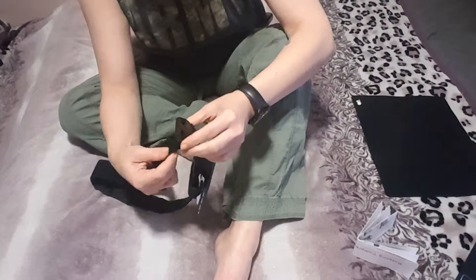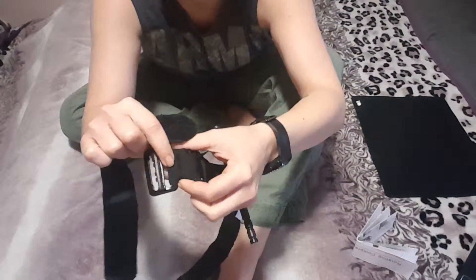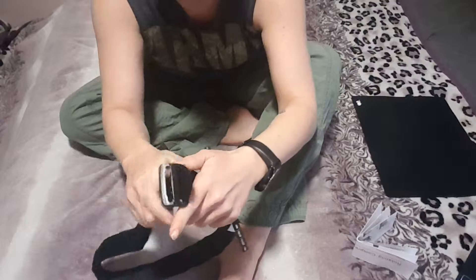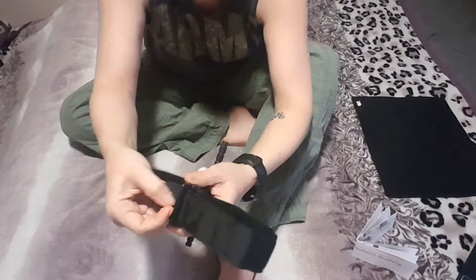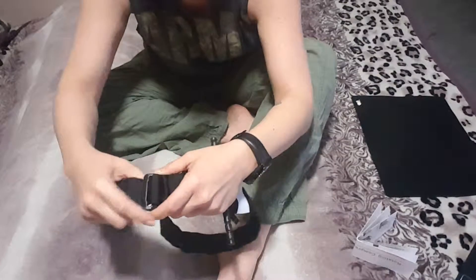So I'm going through the first one — there's a first belt buckle that's already attached to the rest of the mechanism. I'm going to go through that first one and pull through, then go through the second. You've got to keep your Velcro away from each other, because if you're doing it at the same time and they get stuck together, it's going to be a pain.